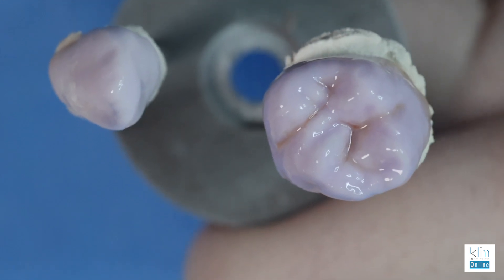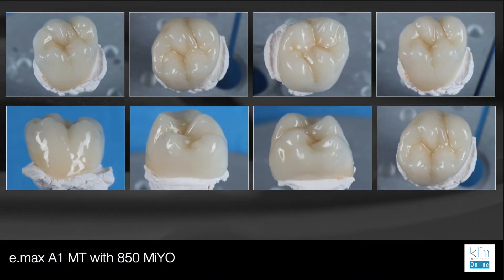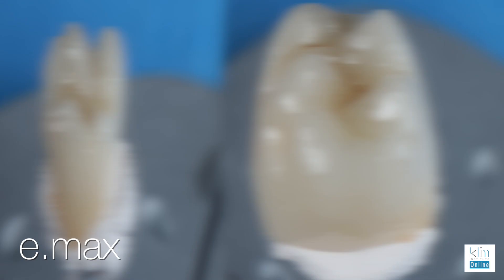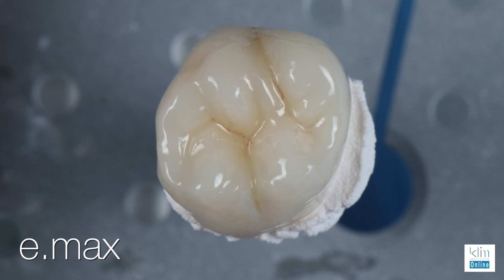850 responds well in all the crystallization cycles and furnaces. And voila! One firing out of the furnace — take a look at the beautiful restoration. I've never seen anything like this in my career. The beauty of this material and what it can do for us is remarkable, and the technique that you saw me use in this video provided that result.